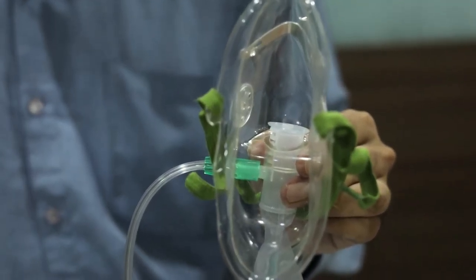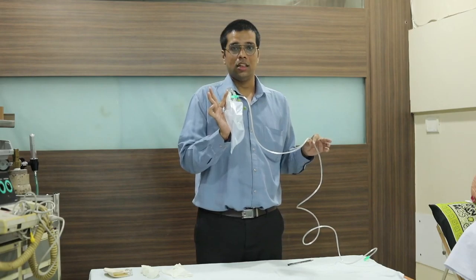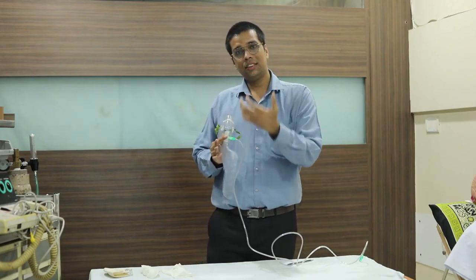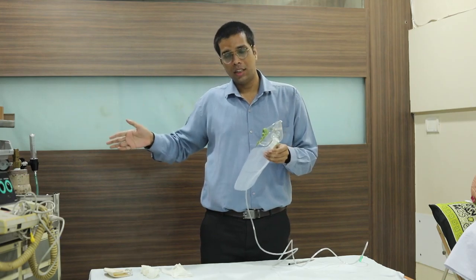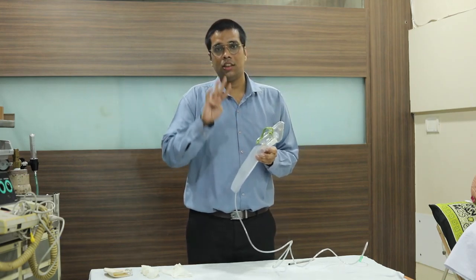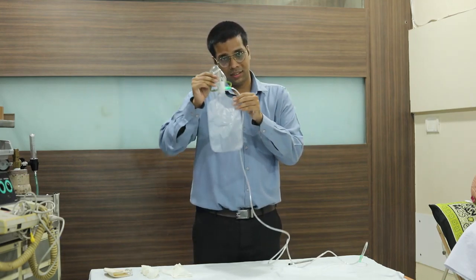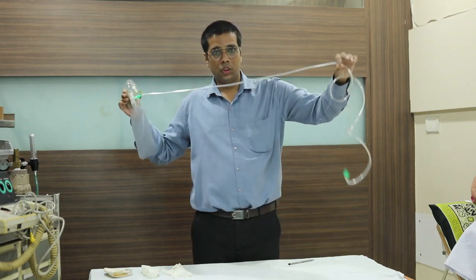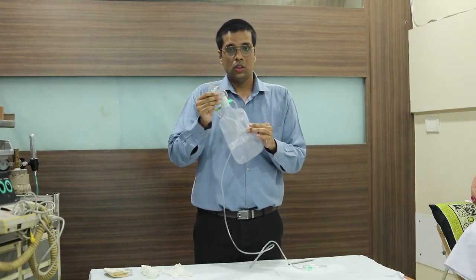This device is known as the non-rebreathing mask. As you can see, there are three compartments: there is a mask, there is an oxygen port, and there is a reservoir bag.